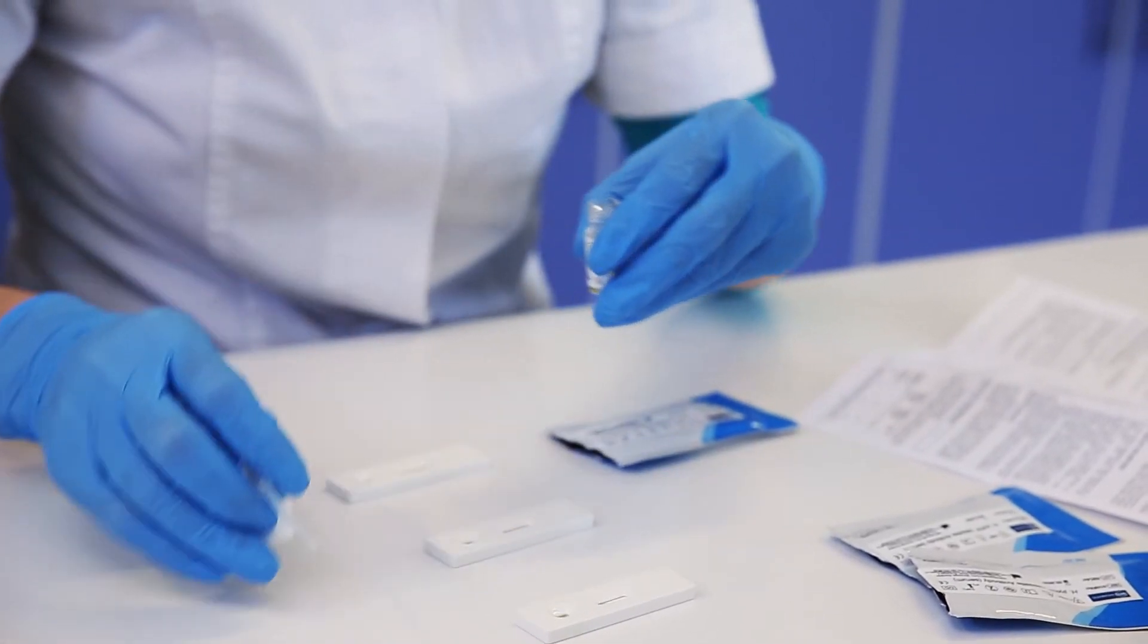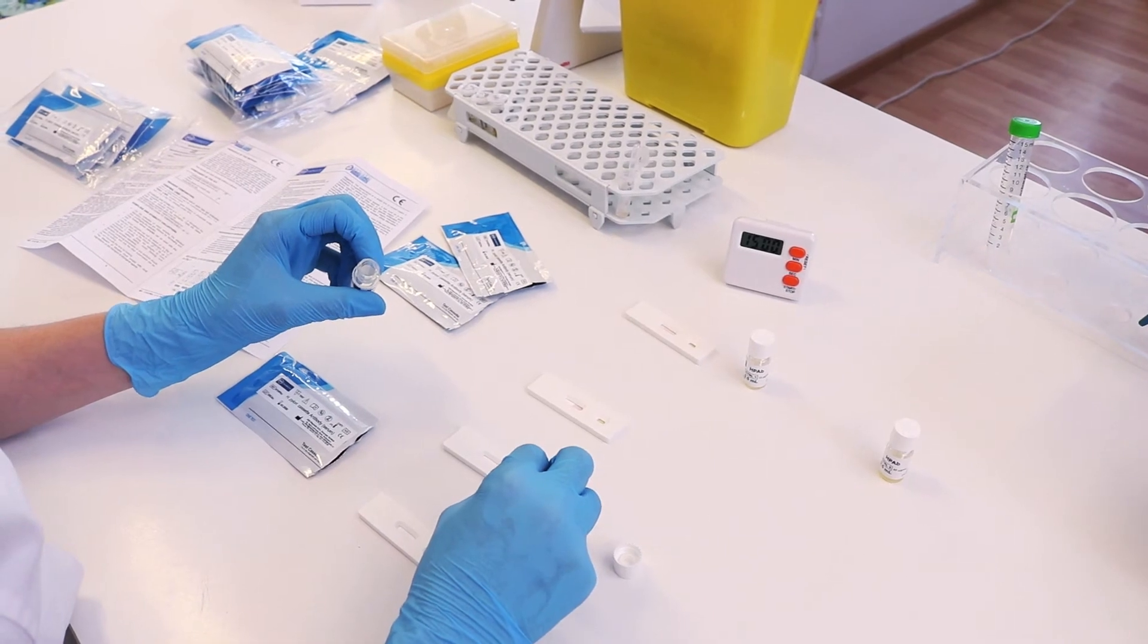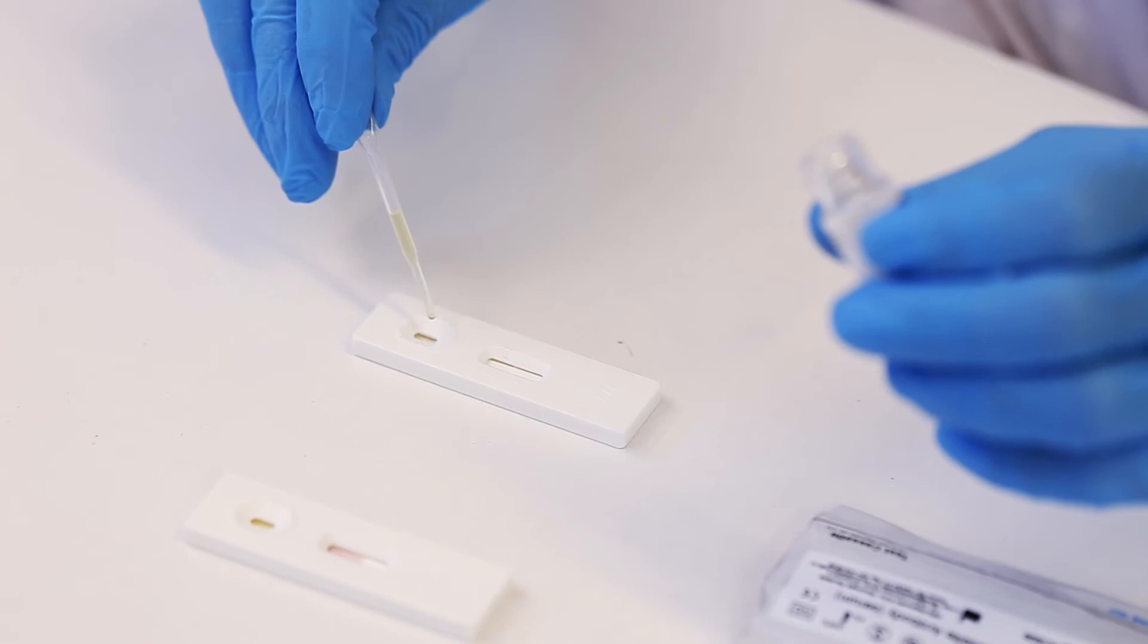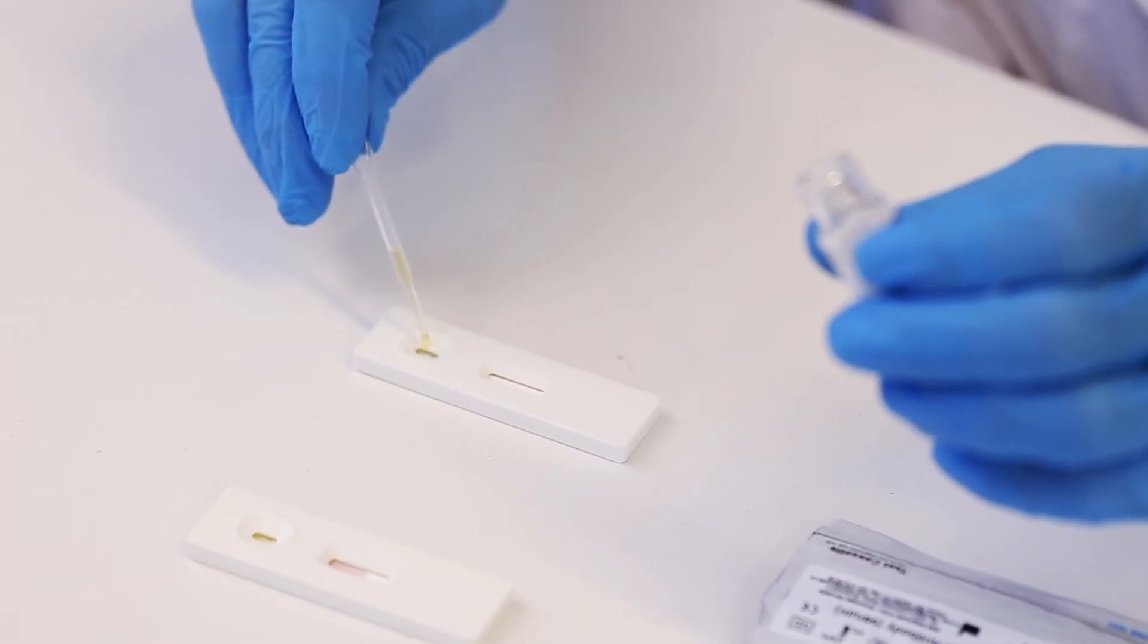Add 2 drops of control serum with a concentration of 20 microgram per milliliter, and 2 drops of control serum with a concentration of 40 microgram per milliliter.